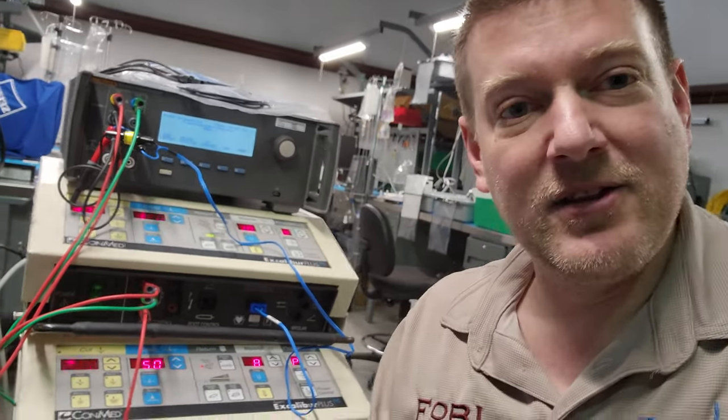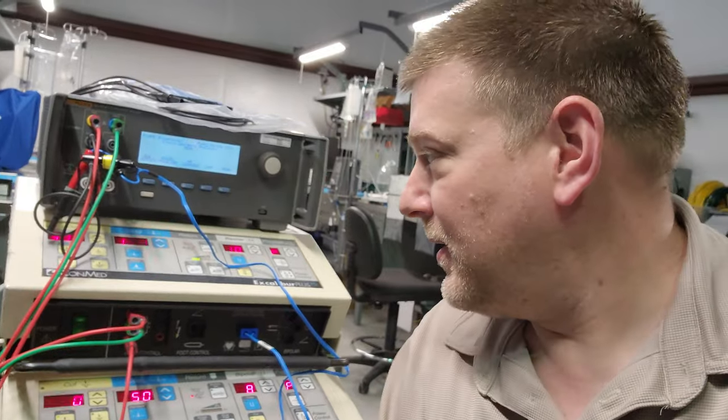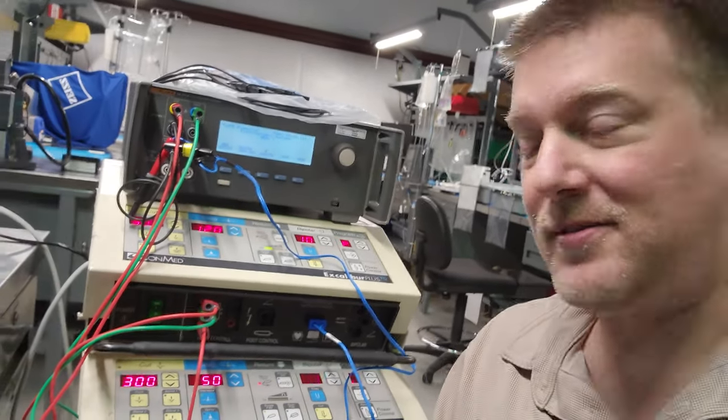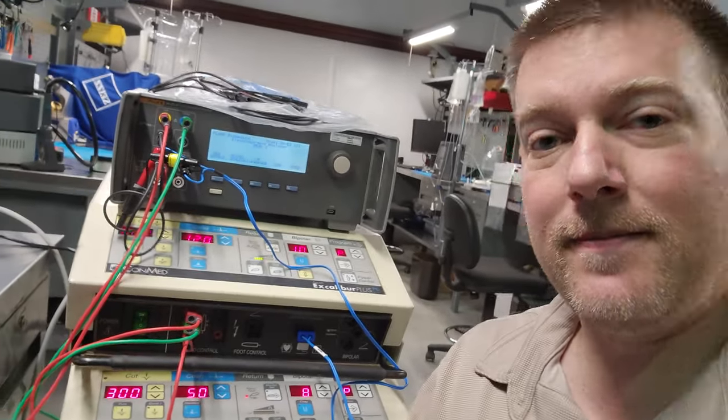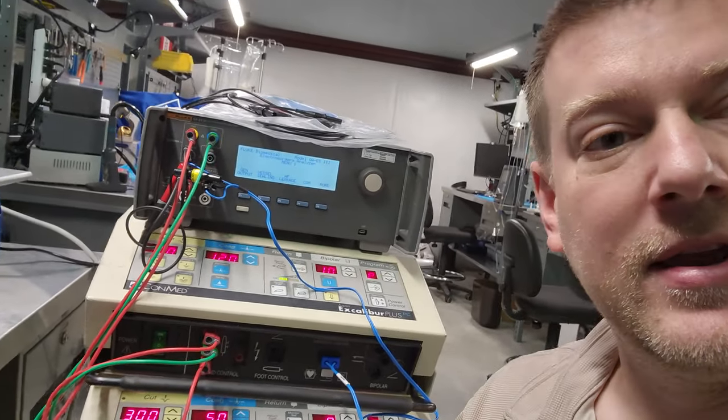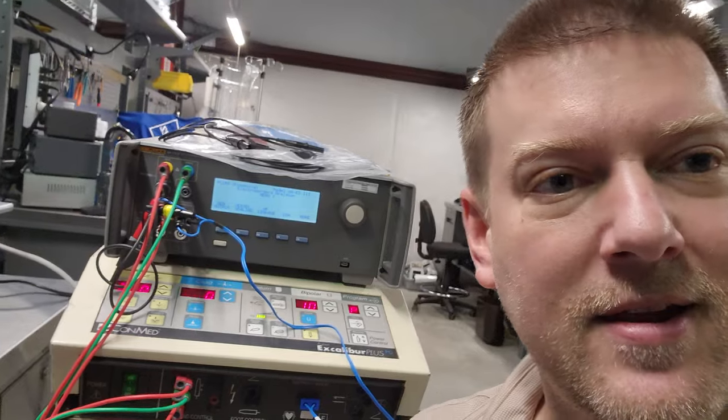ConMed Excalibur Plus. I go ahead and turn it on and it's at maximum settings, which is where I was last testing it at. Let's go ahead and take a look, so I just booted this guy up.